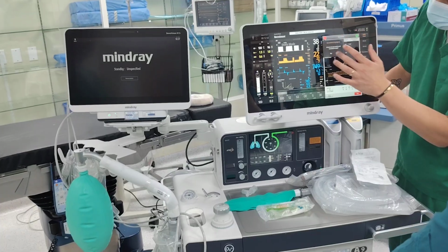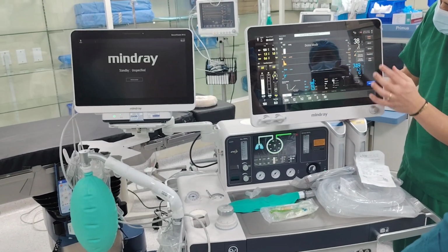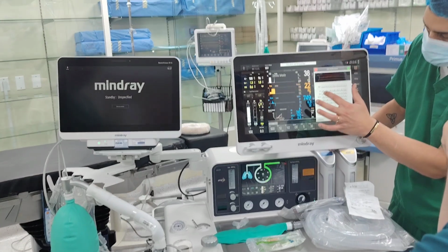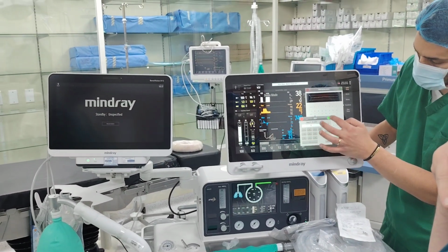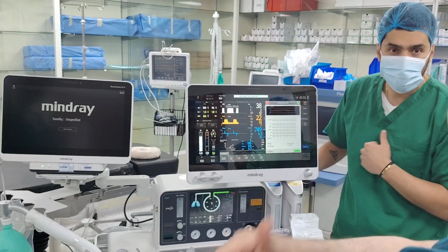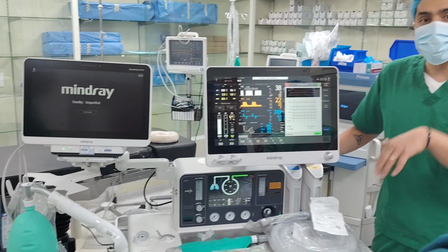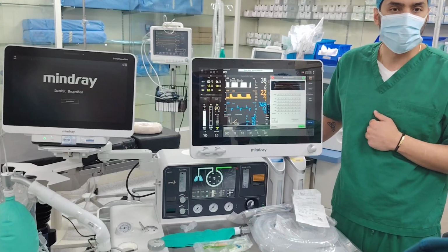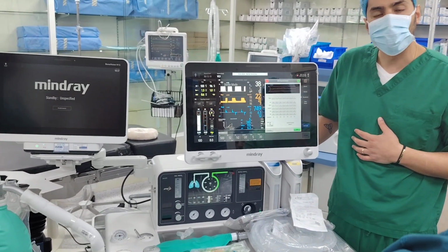Now, let's say, for example, you tell me, Hadi, I don't like your protocol, I want to change. Right? So what you do is, here you can click 7 and change. But why did I put 5? Because most of the time, most of the patients will start at 5. If you have an obese patient who started with 7, then I would recommend you start at 7, actually. So you can change all that accordingly.